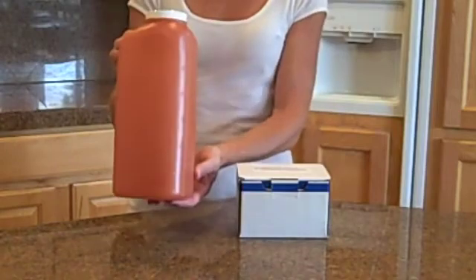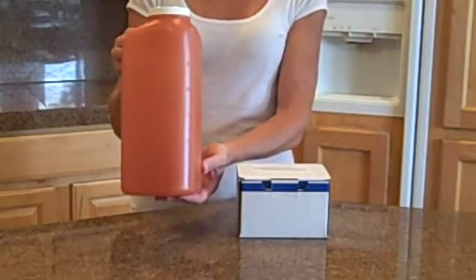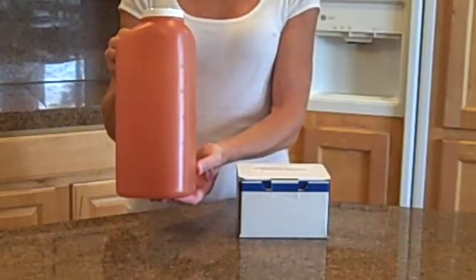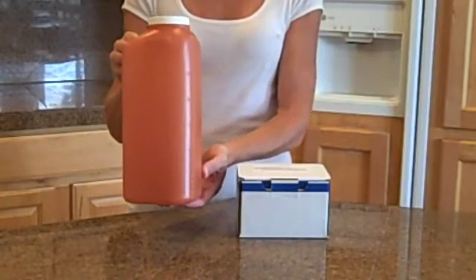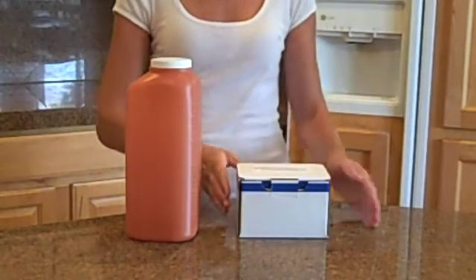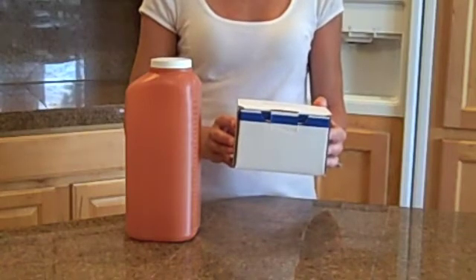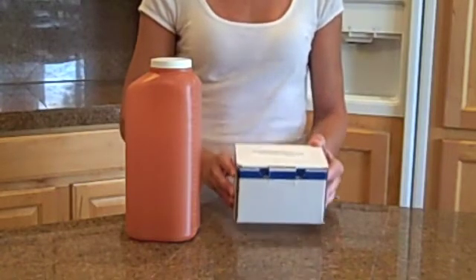The brown bottle is your 24-hour urine collection container. During collection, this bottle should be refrigerated. The bottle itself, however, will not be sent as part of the submission of your sample. The blue and white shipping box includes the remainder of the items that are needed to complete and mail your test.